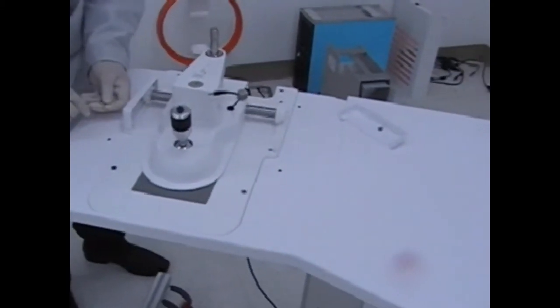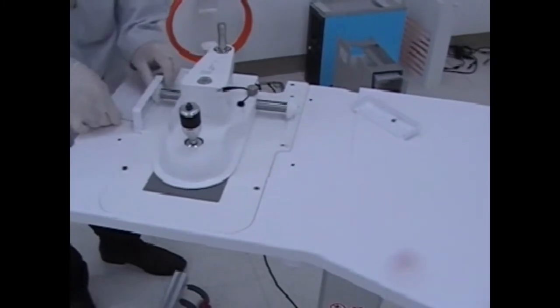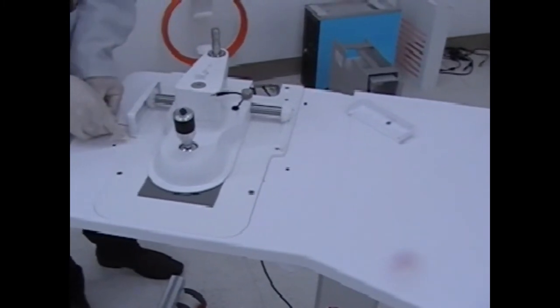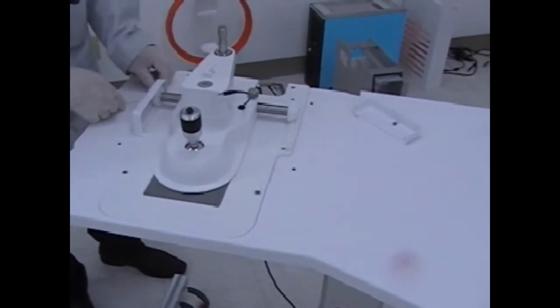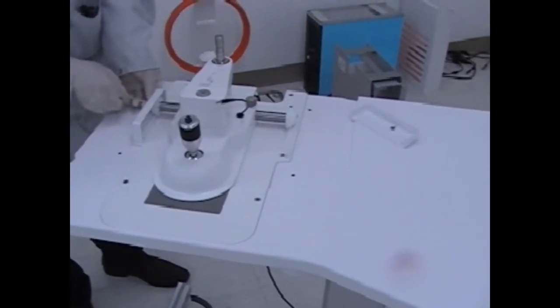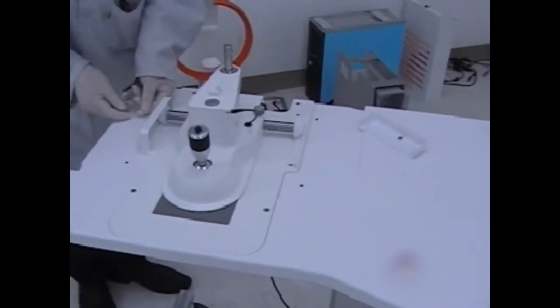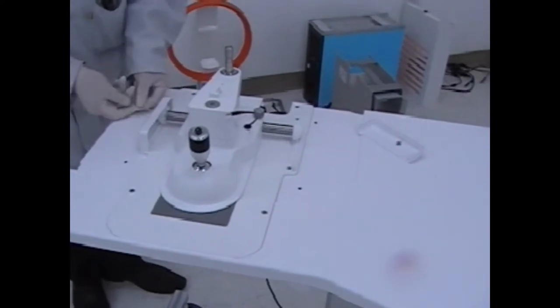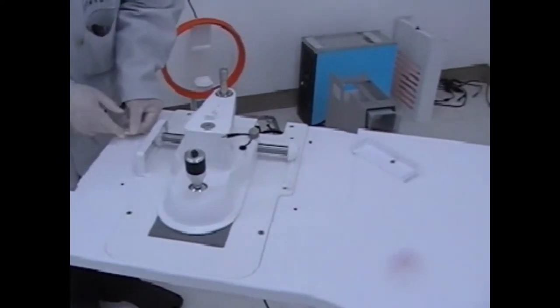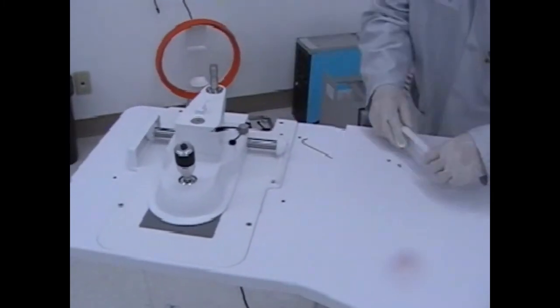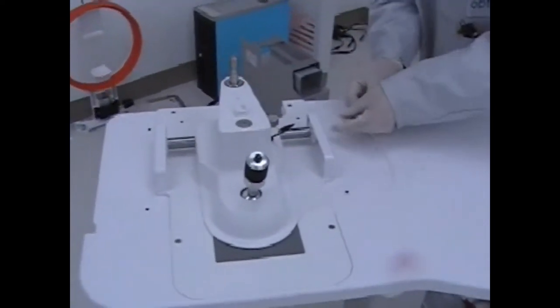There are two small screws attaching each cover, by rolling it forward so that both wheels touch the front cover at the same time. Once the covers are on, lock the assembly down using the silver knob on the right hand side.